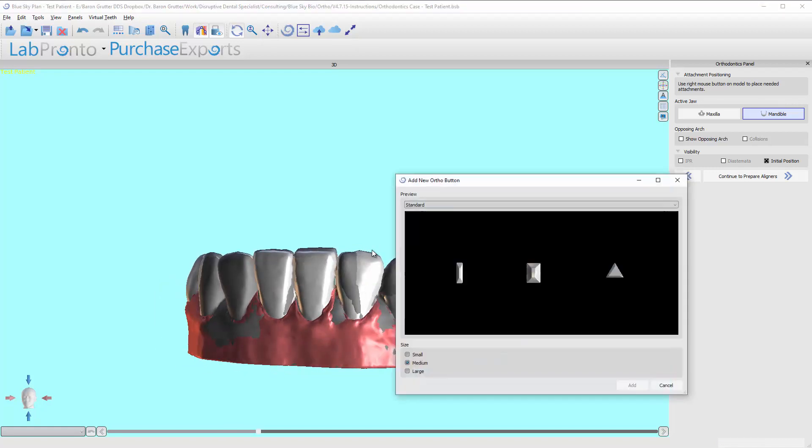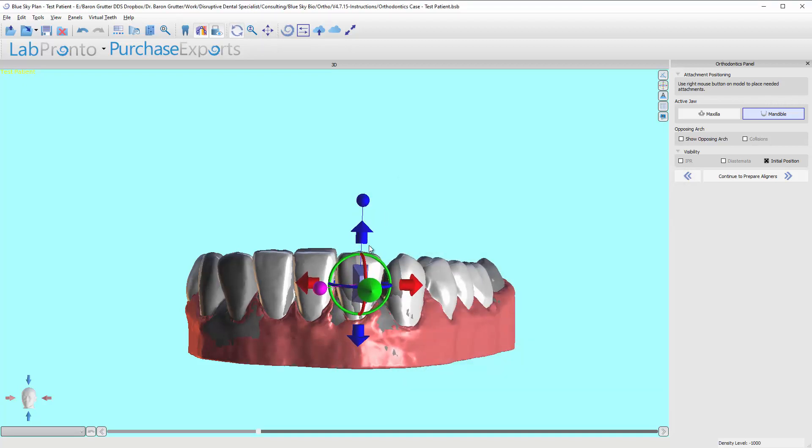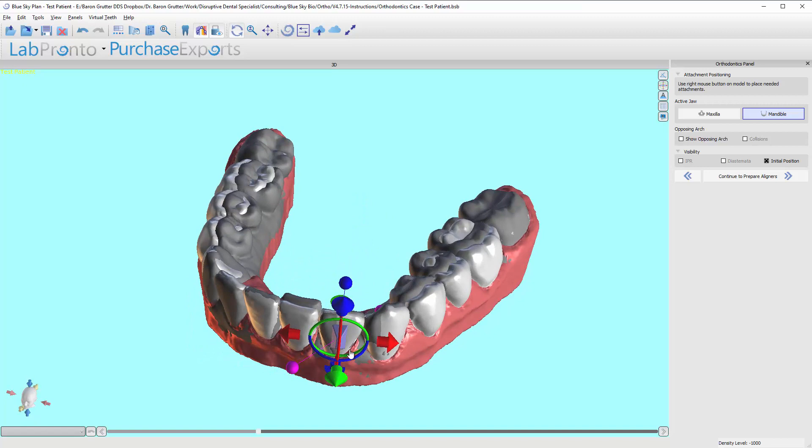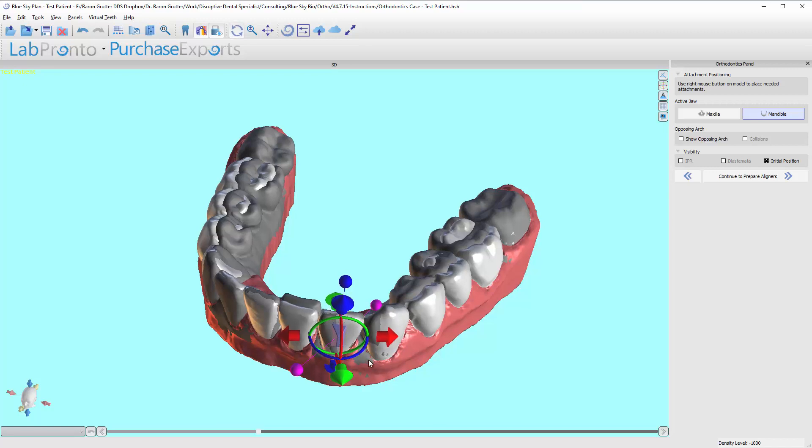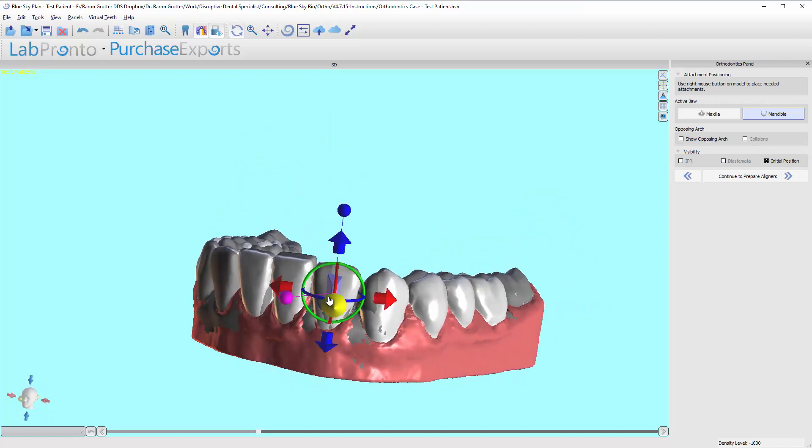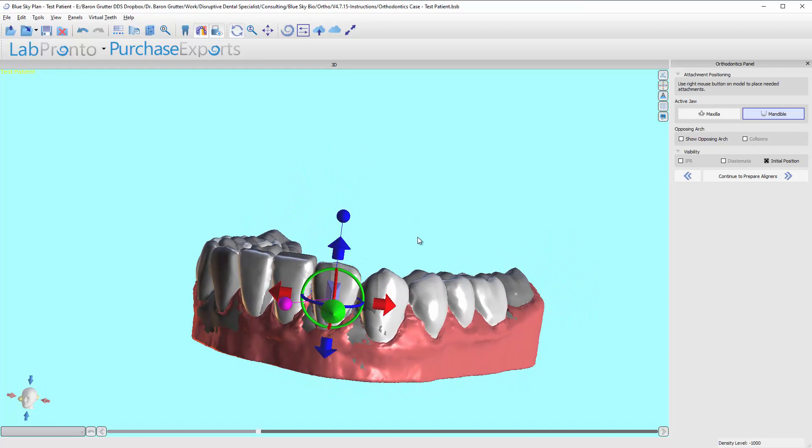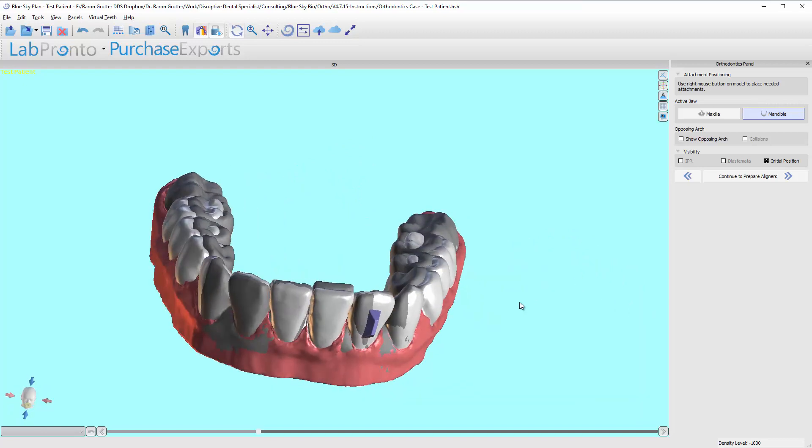So I'll just go ahead and add this. I'm going to leave it medium because it's a lateral lower incisor and they're pretty small. And I'm rotating it clockwise as well. So I'm rotating the tooth mesially. So I'm going to rotate the button distally and push it into the tooth a little bit. Make sure it's deep enough that your opposing teeth aren't going to collide with it when they're closing.